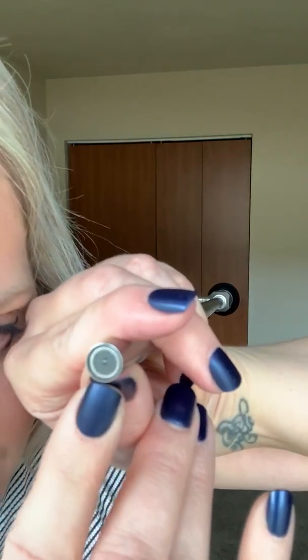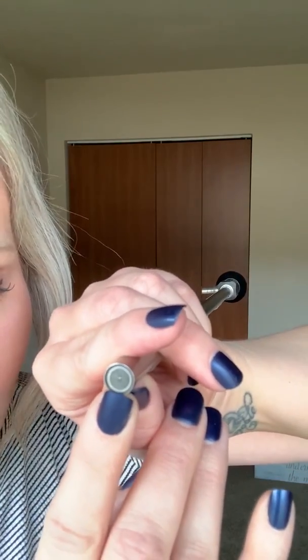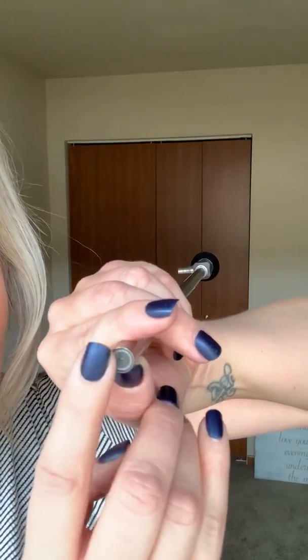Next, run your hand down the scope shaft — any damage to the tubing can indicate damage to the internal components. I most commonly see this with cystoscopes used alongside other instruments. Lastly, check the distal tip using lighted magnification — those little magnification tools at your workstation that never get used? Turn them on. Make sure there are no chips in the glass of the objective lens and no physical damage or abrasion, because you cannot polish out metal that has been shaved off the end of a scope.